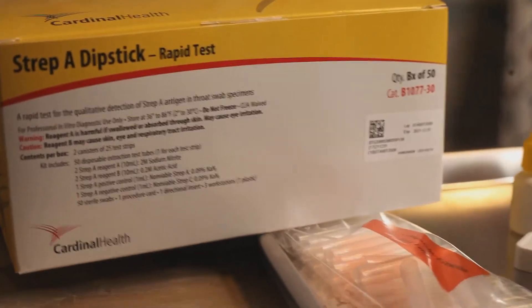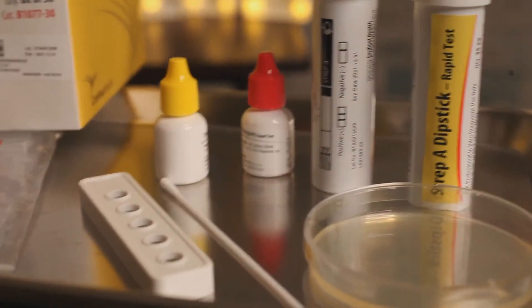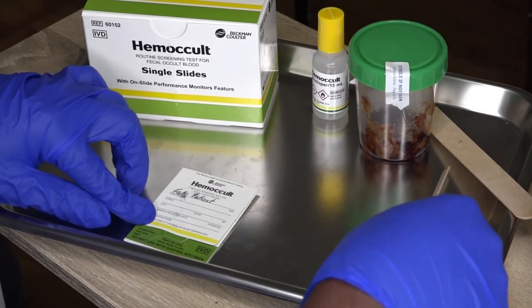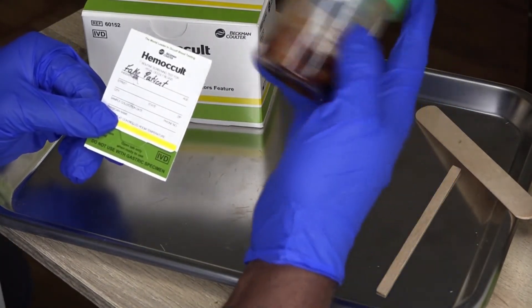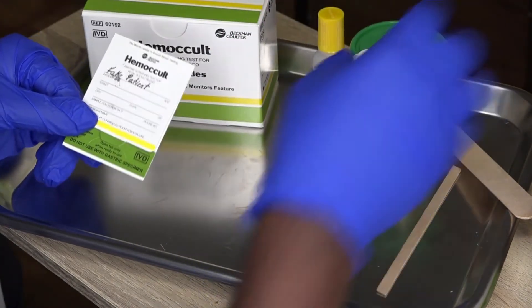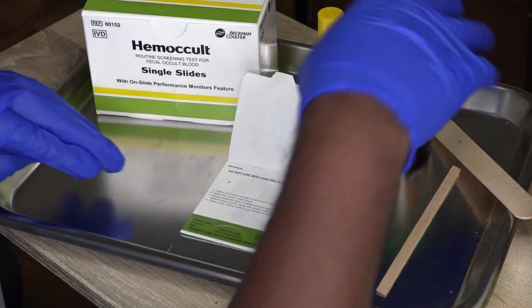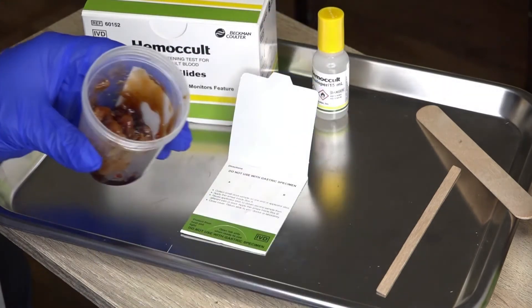I have gathered all my supplies in order to perform this procedure and now I'm going to get started. As I mentioned earlier, you may not be able to see blood in the stool with the naked eye, but that does not mean the blood is not there. First we have to get our specimen together, and then we're going to make sure that we write our patient's name on the hemoccult card. After that, we're going to get our specimen and use the wooden applicator that came with the kit to draw out our stool sample.